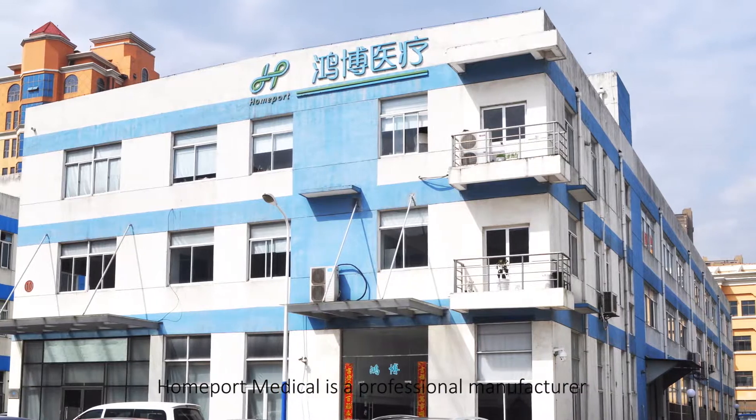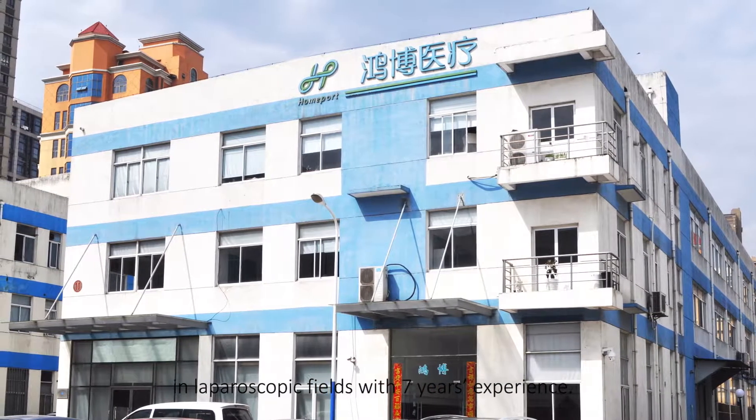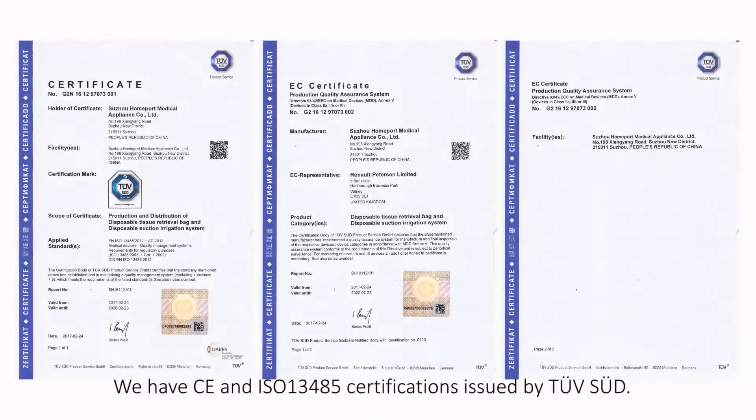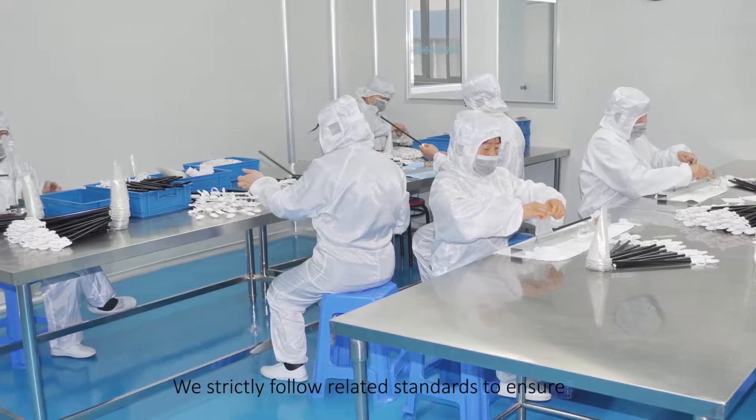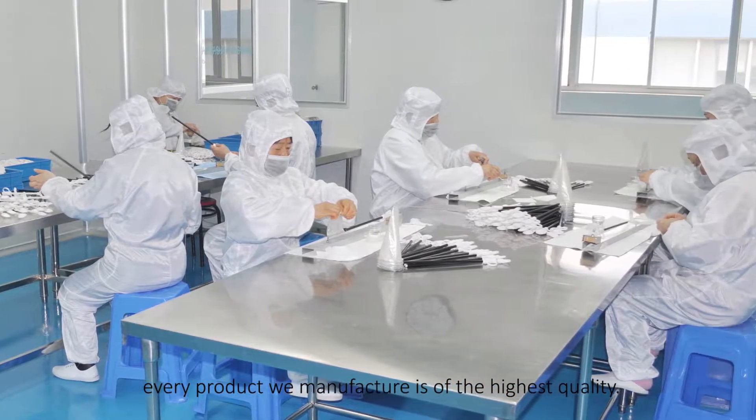Homeport Medical is a professional manufacturer in laparoscopic fields with 7 years experience. We have CE and ISO 13485 certifications issued by TUV-SUD. We strictly follow related standards to ensure every product we manufacture is of the highest quality.